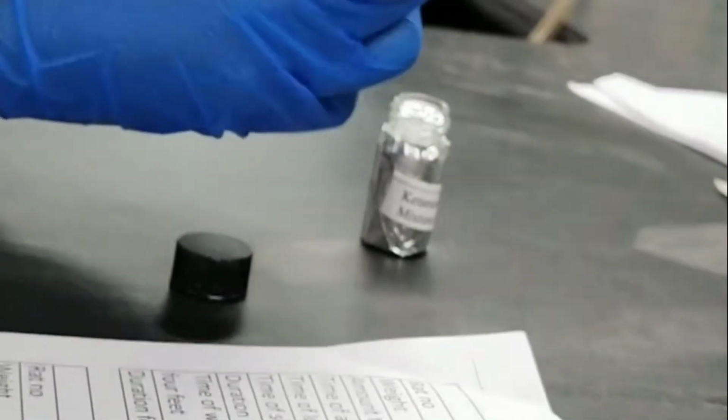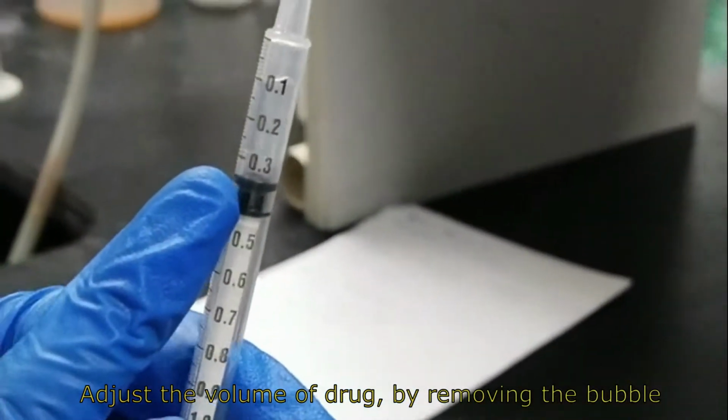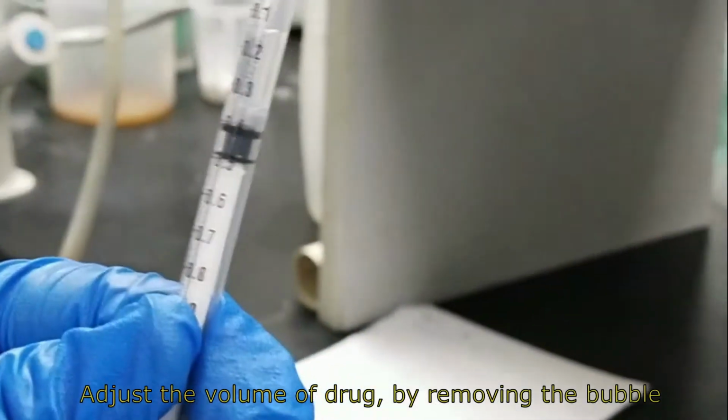So we also need to remove the bubble from the syringe. As you can see here, we have the very big bubble here, so we need to remove it from the syringe.